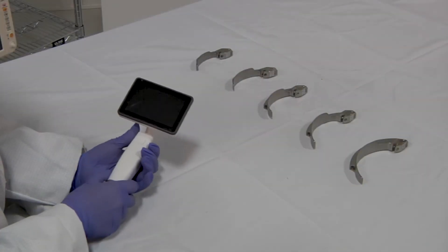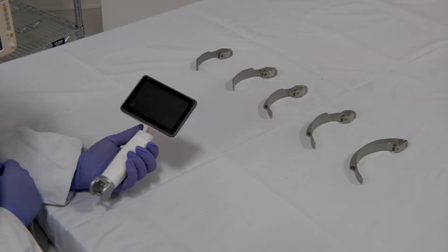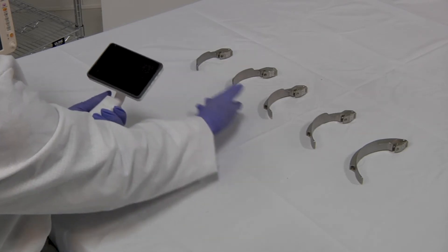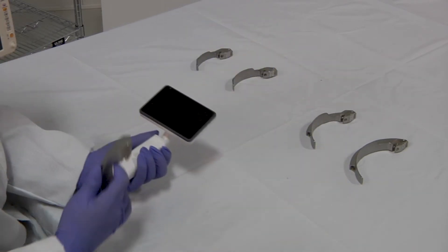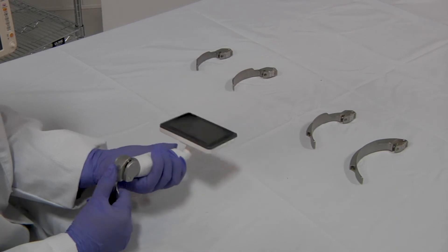In this video, we'll be using reusable blades for demonstration. First, select the proper blade size based on your patient type and condition. Connect the blade to the main unit.